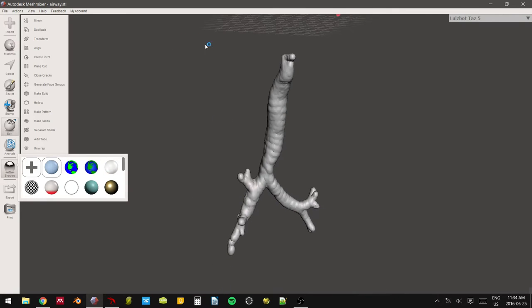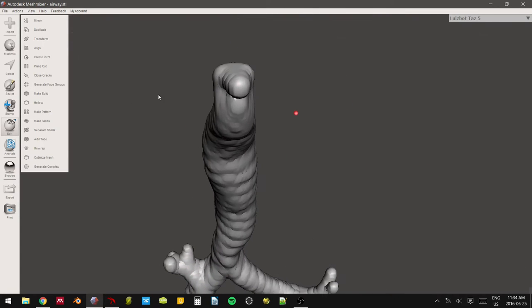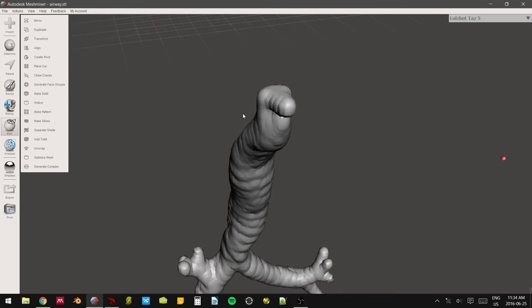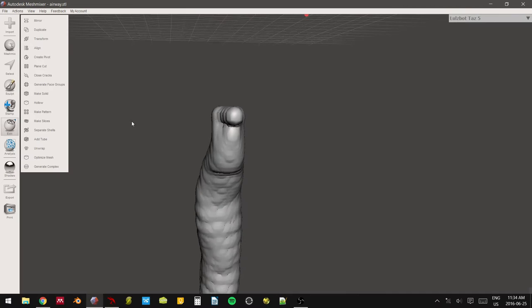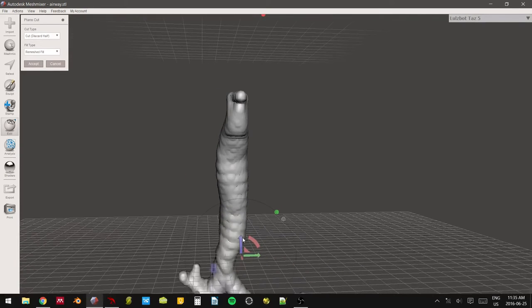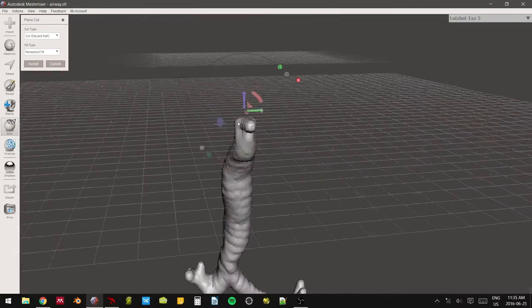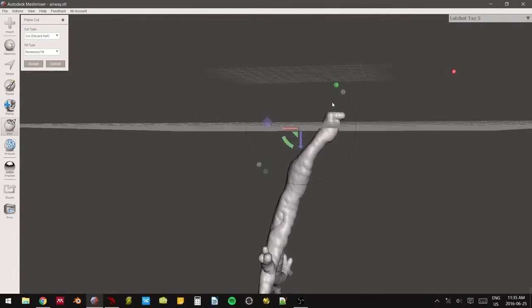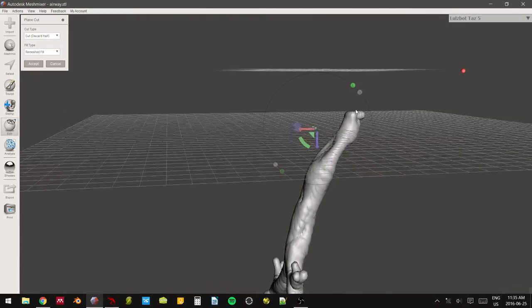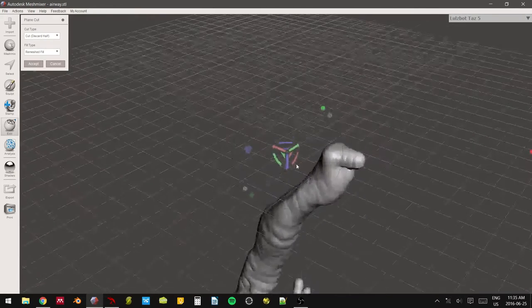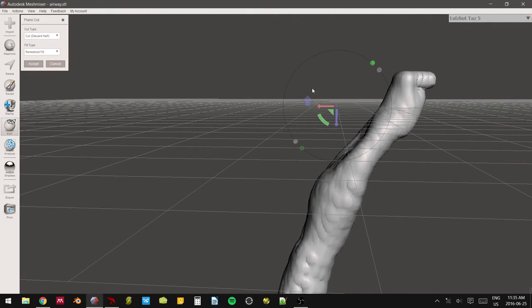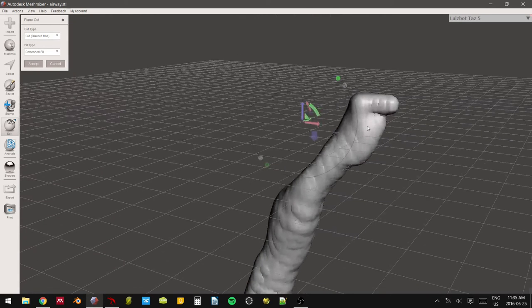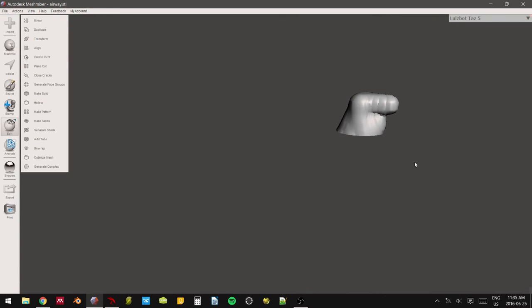The second way you can tell, and the second way that we actually have to make this model, is we're going to do a plane cut right here at the top of the trachea. The plane cut is going to open up the entire model so that you can actually put things down it, which is the ultimate goal. So go to plane cut. It's going to open up this two-dimensional plane that extends infinitely in the X and Y directions. We're going to move it up to the Z axis, and we're going to just tell it to keep the bottom. And for whatever reason, sometimes my mesh mixer does this, where you can't actually preview the cut. And that's really annoying. But what's important is that this fat arrow is pointing upwards, downwards.